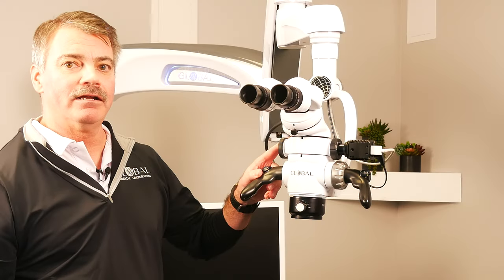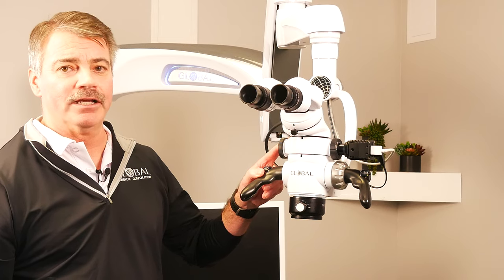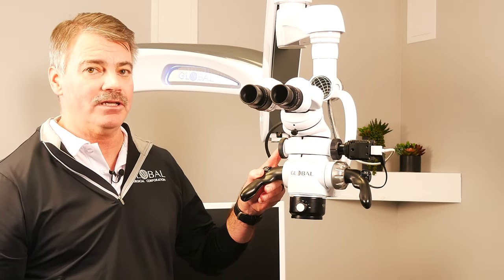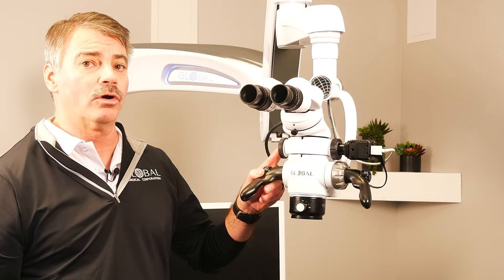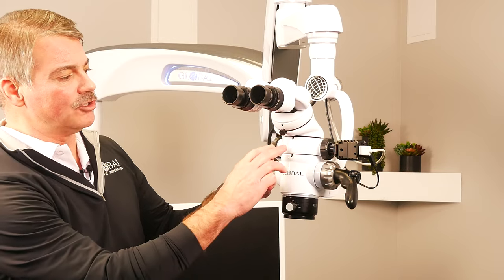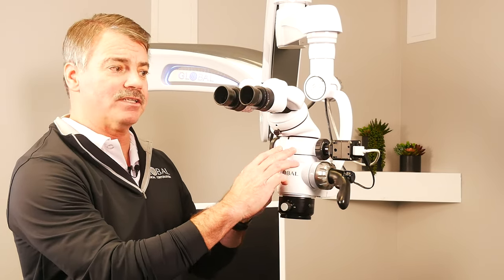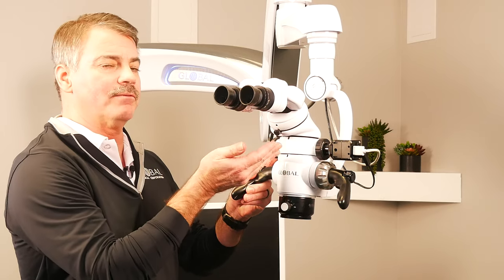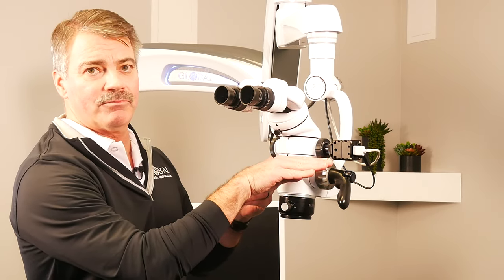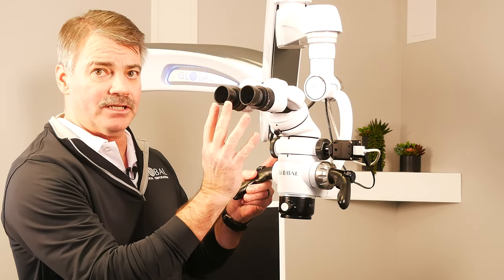Moving on up, we find one of our most popular options sold with the microscope system — our HD video system, which consists of either a 1080p HD camera or a 4K HD camera. Both go onto what's called a beam splitter, which takes the light being reflected back up to the operator's eye and sends 50% of it to the camera system so they get the same image as what the operator sees in the binoculars.